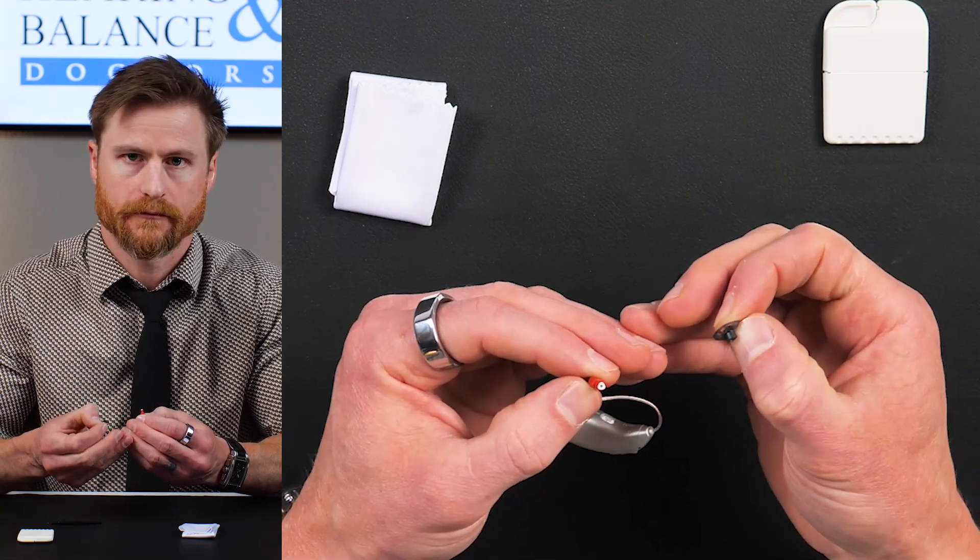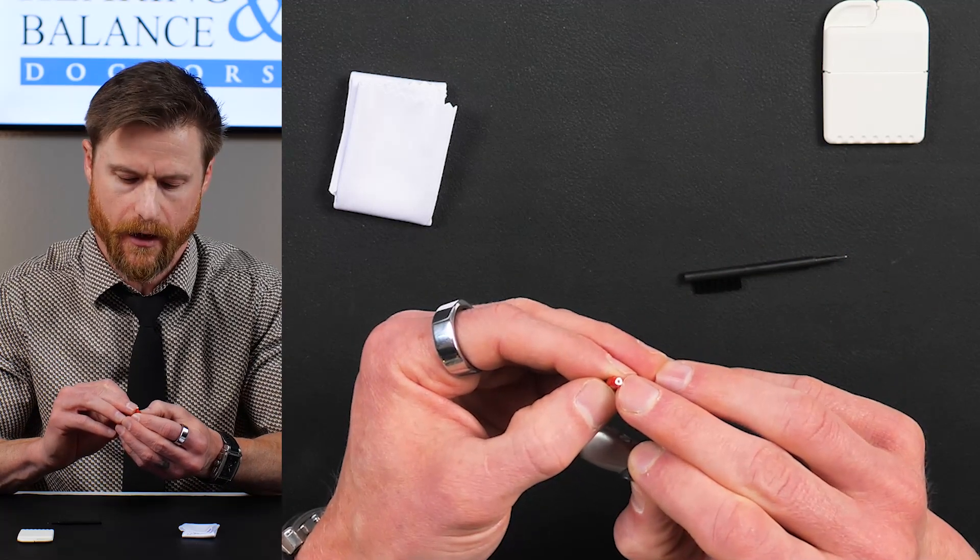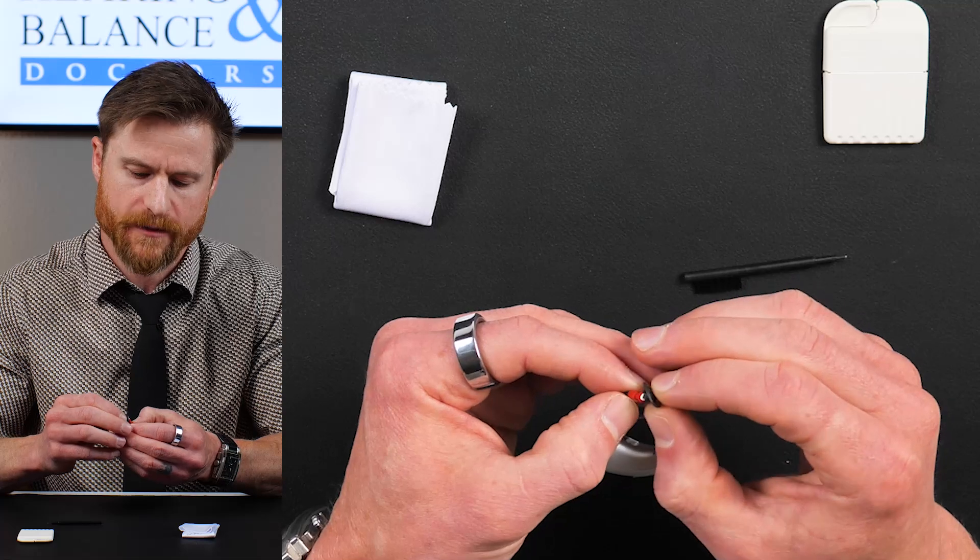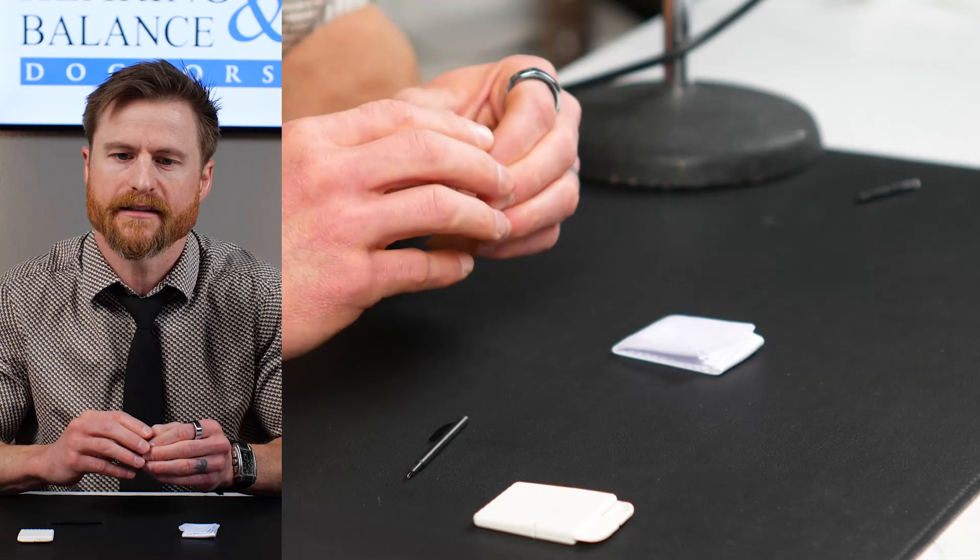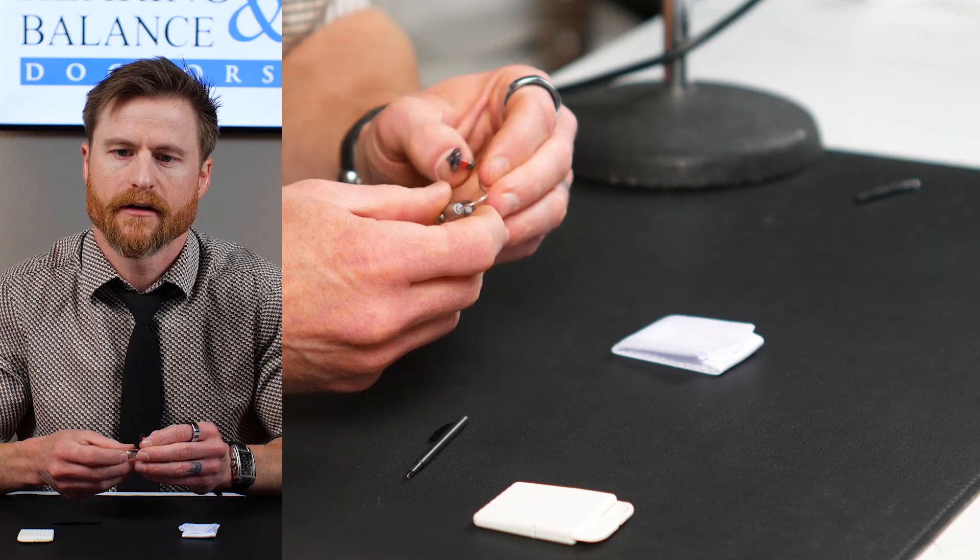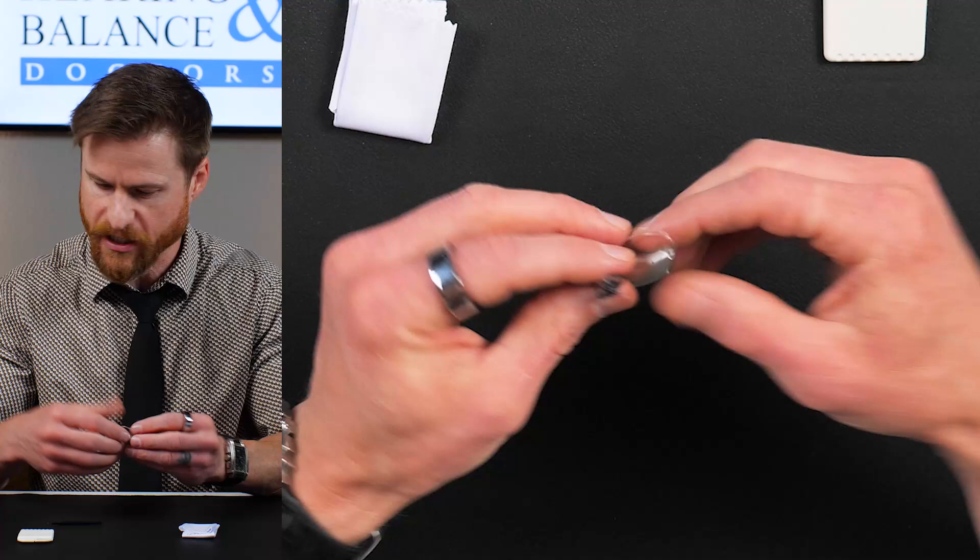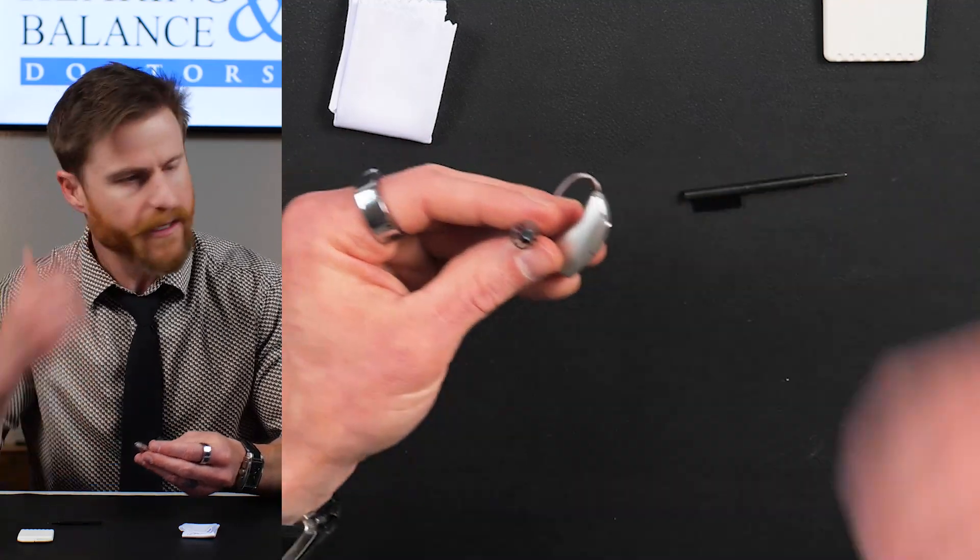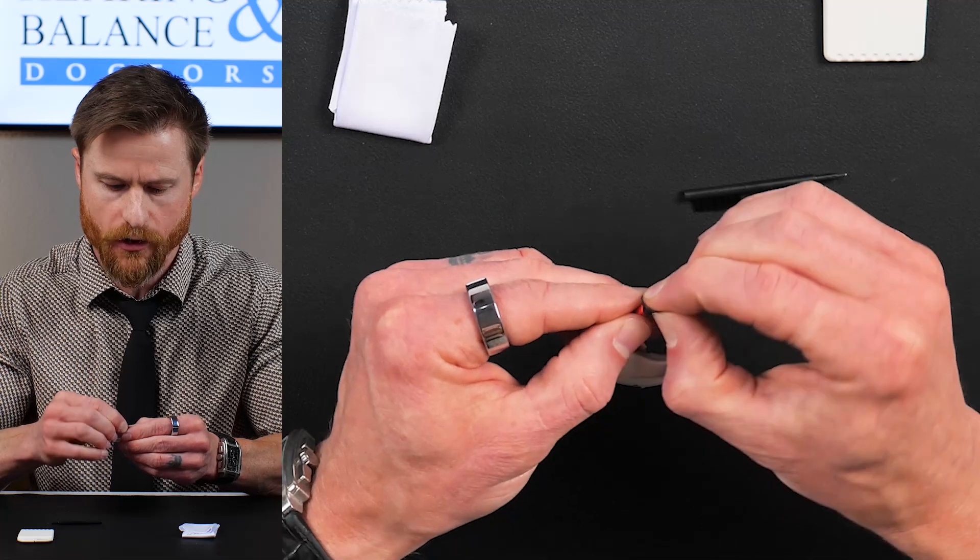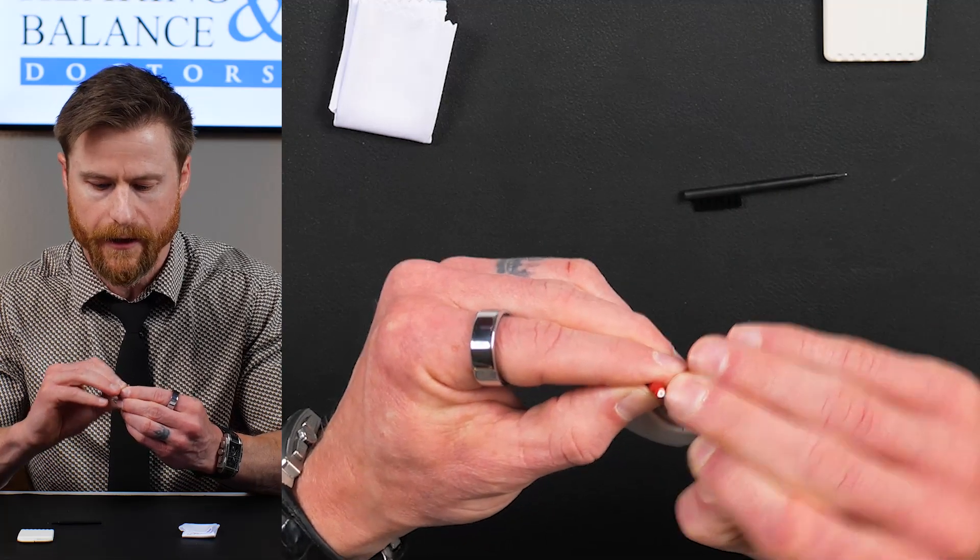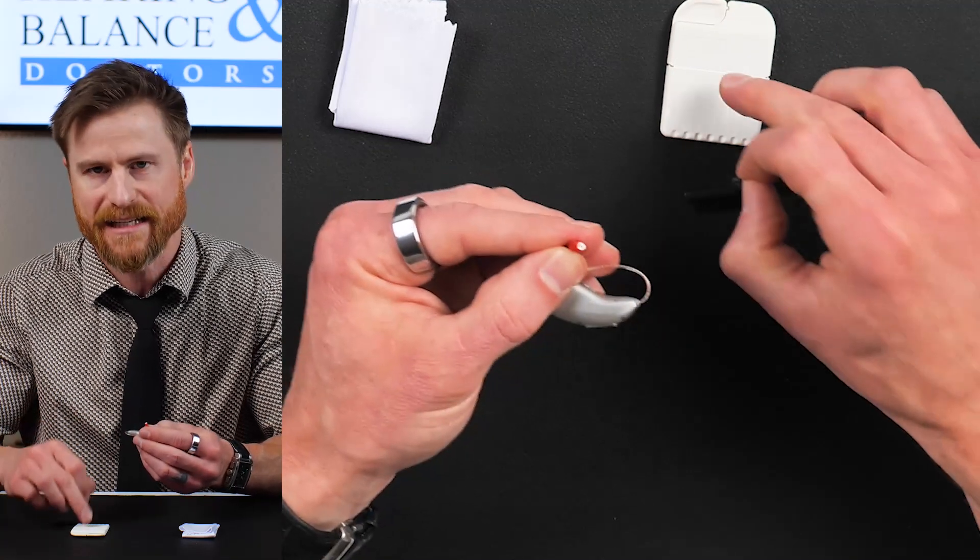Runny, goopy, soft wax, that is more likely to gunk this filter up. You'll know it's plugged because maybe one day you put the hearing aid on and it sounds like the hearing aid's not even working. And you're like, what the heck? I charged it, right? It's charged. I know it's charged. It's connected to my phone. I see it. It's not working. There's no sound coming out. Well, check the filter. Take that dome right off. Oh, there might be some wax in there.